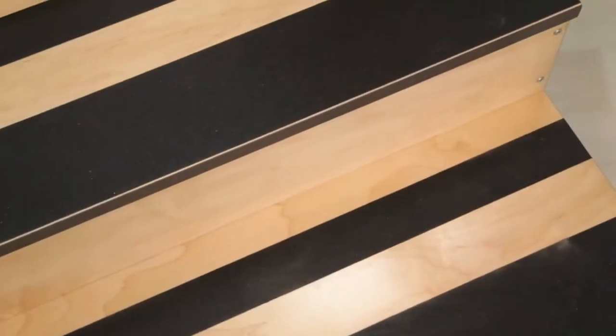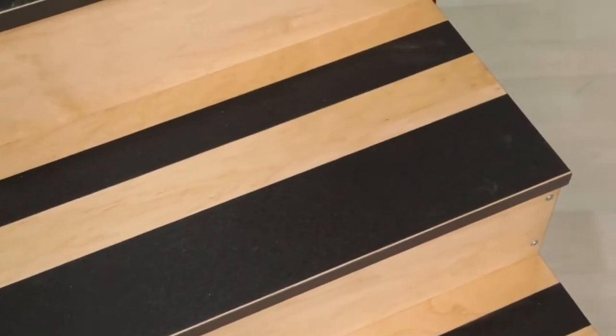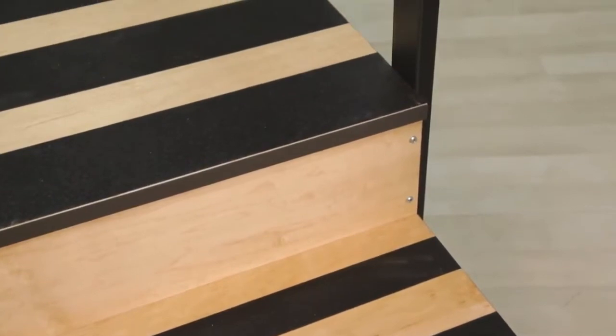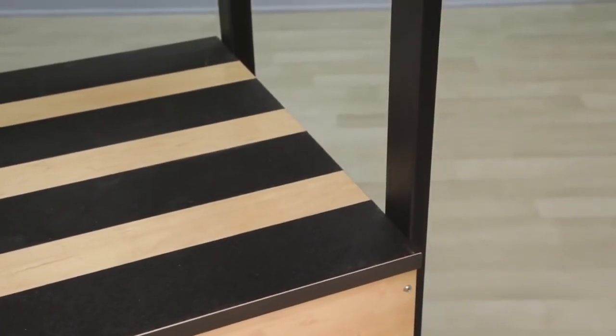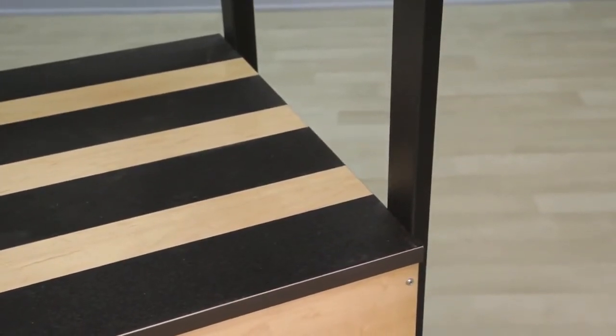Two full-width safety treads on each step and four on the platforms provide a sure-grip, non-slip surface, which helps build patient confidence in stepping up and down.